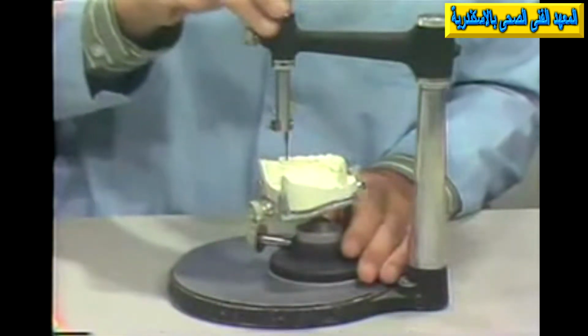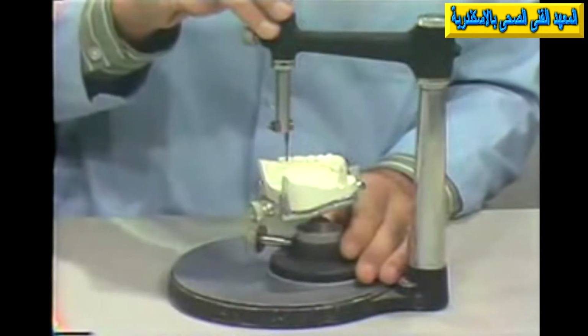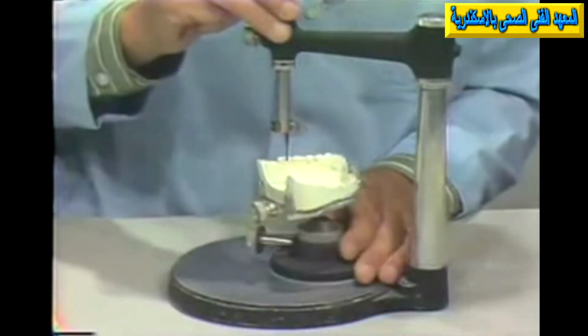We intend to use this also as a guiding plane, and we intend to have a reciprocal arm to offset the cast clasp on the buccal. So we'd have to evaluate this. And we slide this arm to place along this surface, and it is pretty flat. Perhaps if we shifted it just a little bit and we could move the cast, perhaps just a little. Now that plane is fairly flat. This would serve as a very nice guiding plane. Our reciprocal arm here could engage the tooth, and as the partial denture is removed from the mouth and the reciprocal arm starts to slide out, notice it continues to engage the tooth until finally it comes loose.